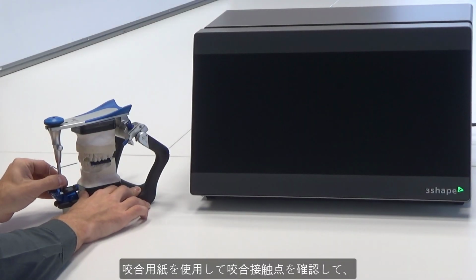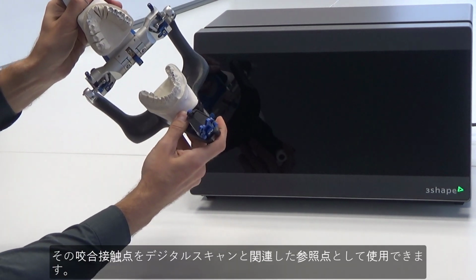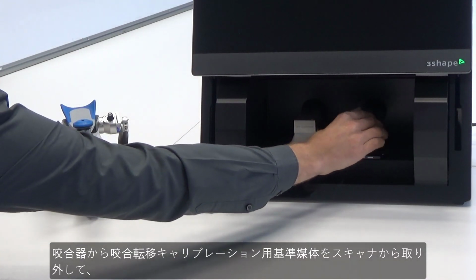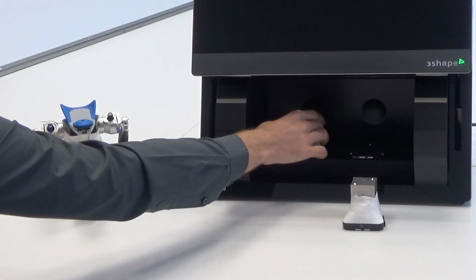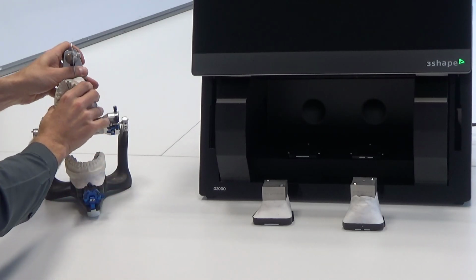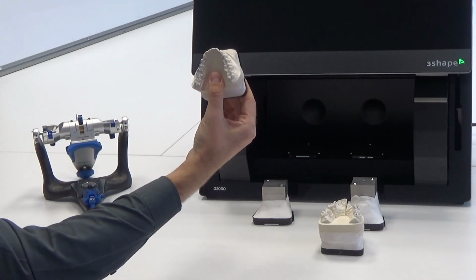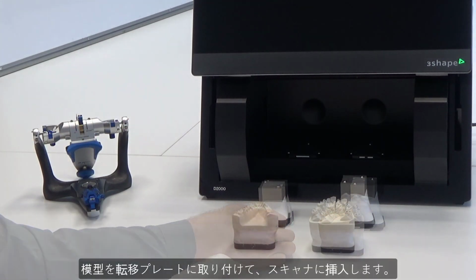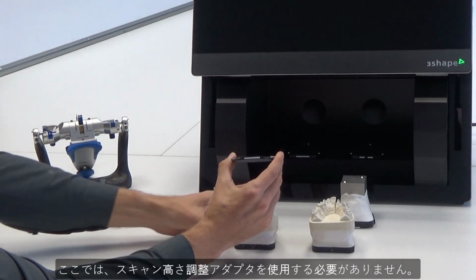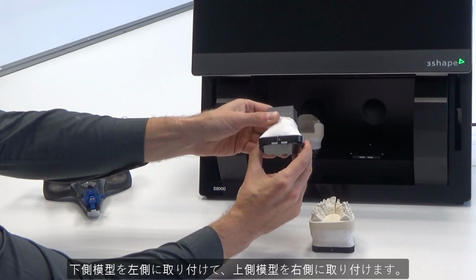You can check the occlusal contacts using occlusal paper, and then use the contact points as reference points in conjunction with the digital scan. Remove the Occlusal Transfer Calibration object from the scanner, set the mounted models on transfer plates and insert the models in the scanner. A height adapter is not required during that process. The lower model should be set on the left side and upper on the right side.